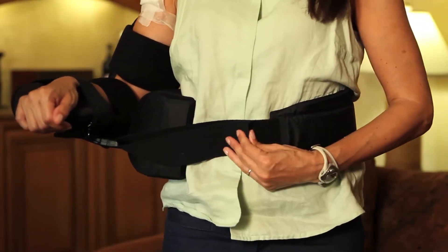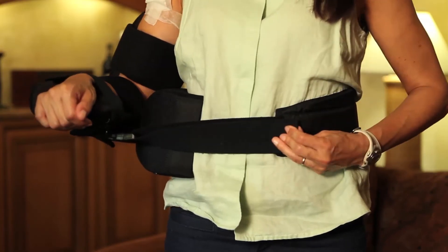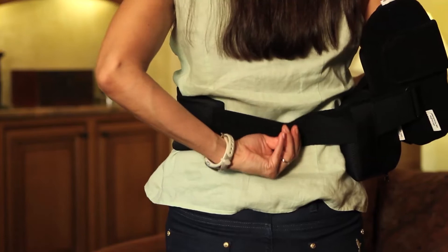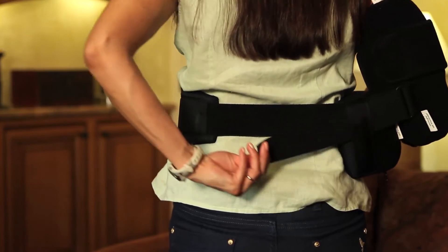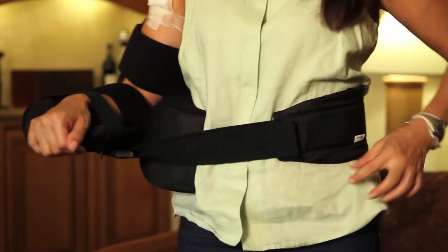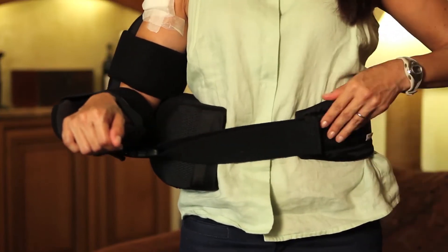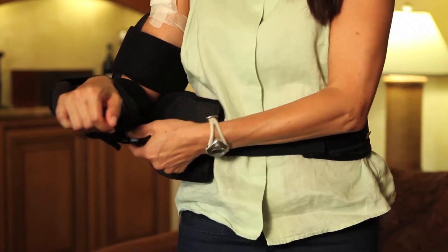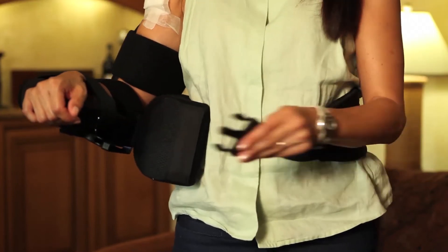The cradle should then be adjusted to suit your individual needs. There are two waistband adjustment points — one in the front and another in the back. The side pad should rest comfortably on the opposite hip, and the waistband should fit snugly for good support, but not so snug as to cause discomfort. Once adjusted to fit you, simply use only the buckle to get in and out.